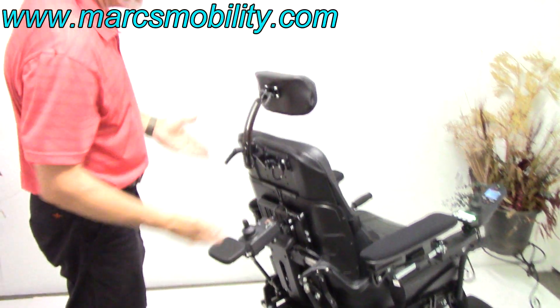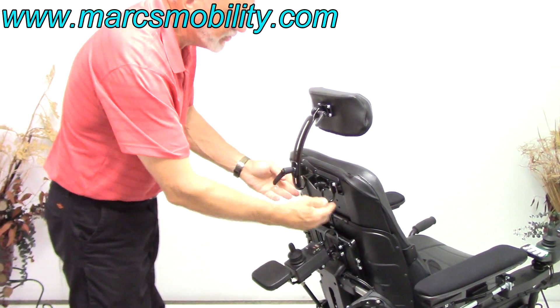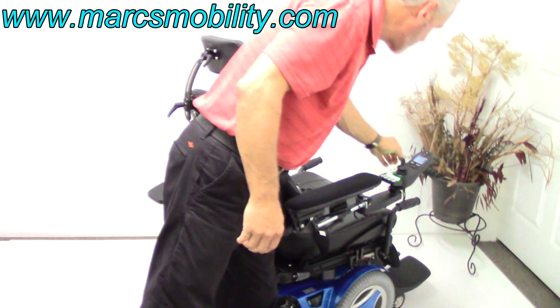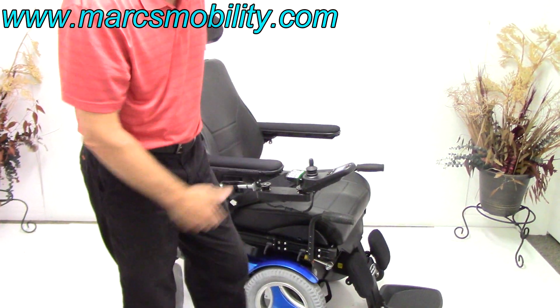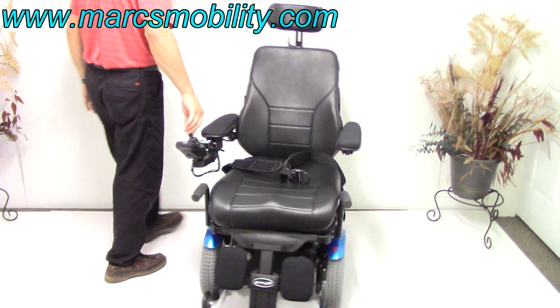You have hooks to carry a bag — two hooks back there. There's also an attending control on the back of the chair, meaning you can drive the chair from behind by switching the modes. I need to program this chair with my computer, but when you buy this chair it will be fully working. Behind the chair you also have cylinders that adjust the tilt on the arms — these arms can be tilted to any position you want. When you drive this front-wheel-drive chair, this is your turning radius.